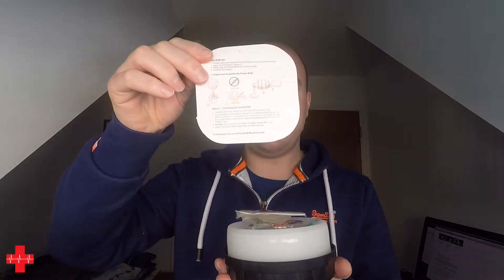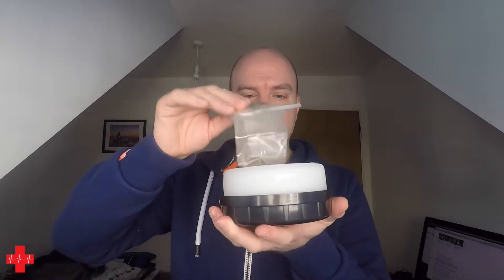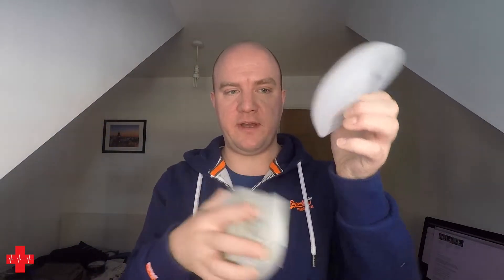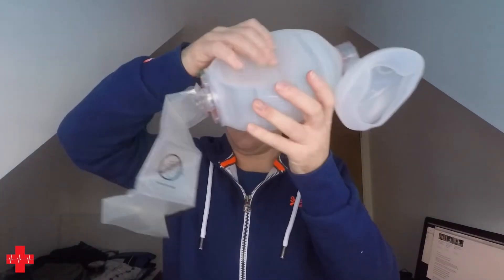Let's have a look. Just twist it and it will open. Inside it are some basic instructions, contact details of the company, and you straight away see the reservoir. Take the other half of the lid off and it is still quite compact. Now you can pull out the mask, push it into shape, and you have a generic adult mask and the BVM itself. Pull it apart quite firmly — don't be scared. Connect this on here and here we go.